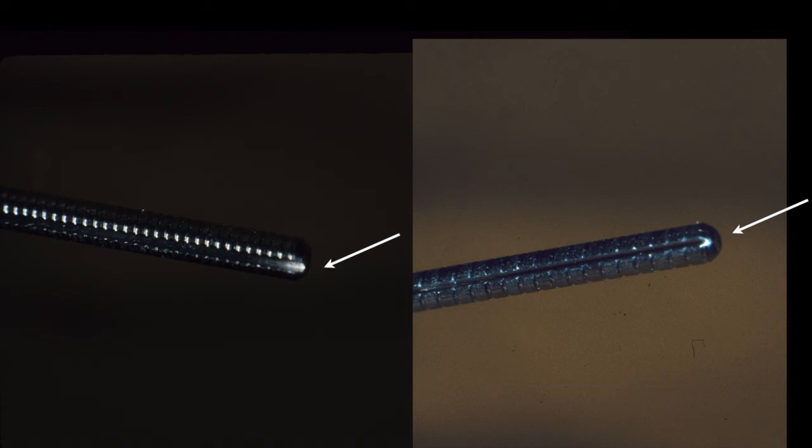All posts, whether cast or manufactured, should have an open vent of some kind, either with an oversized hole or the standard vent. Current paraposts are serrated, which apparently acts as a venting system. Otherwise, it is a hydraulic piston specifically designed to crack the root. Be sure to test by using the bounce back technique.